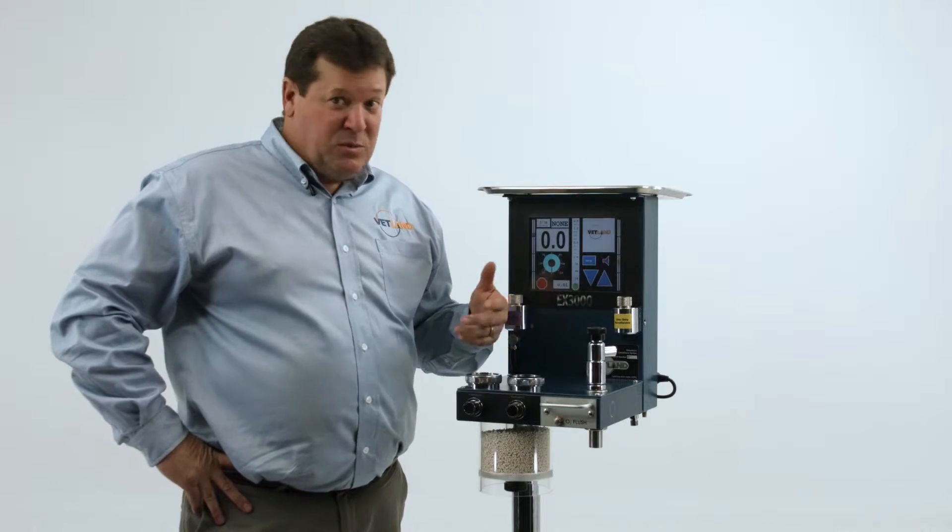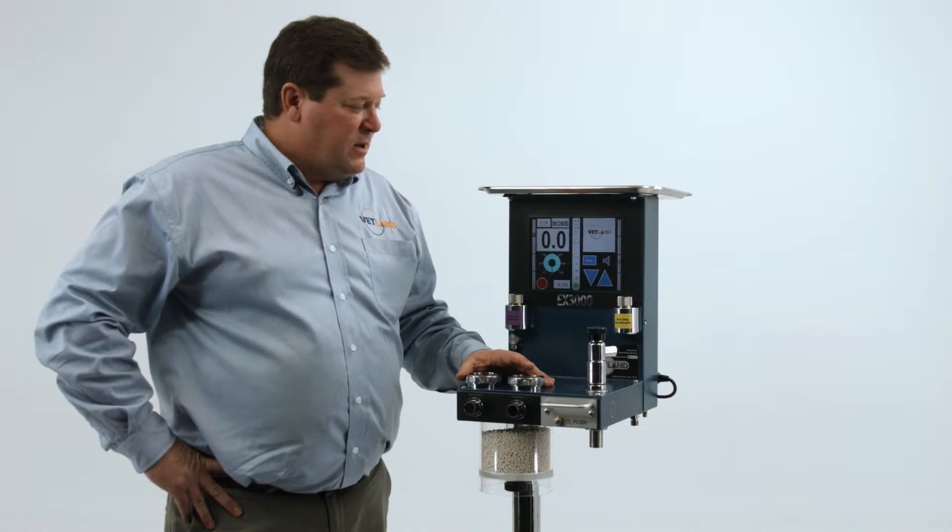People were afraid of the electronics in the beginning. They see it as something to go wrong, but it's been on the market now nine years and we're having almost no problems anywhere. I can count on one hand the boards or components we've had to replace in the last nine years. So it's very reliable.